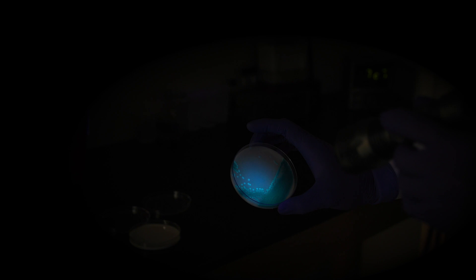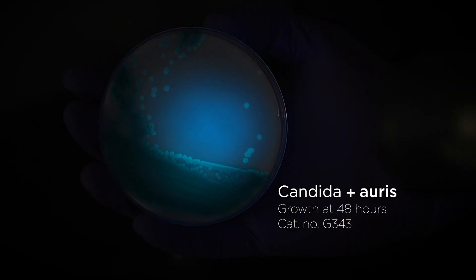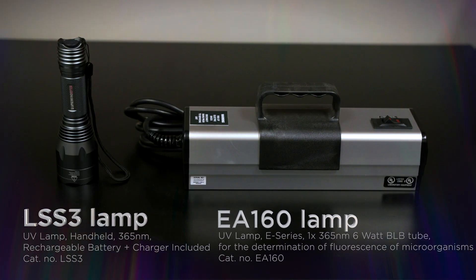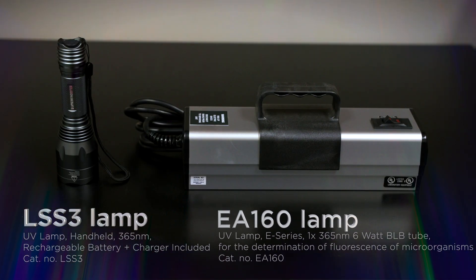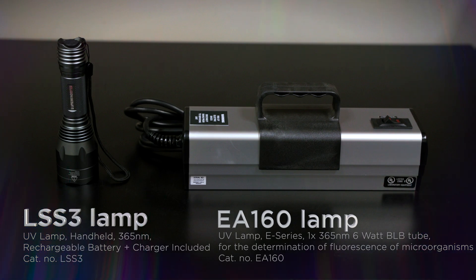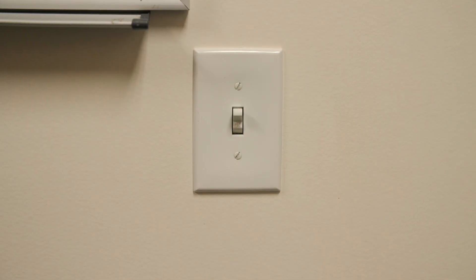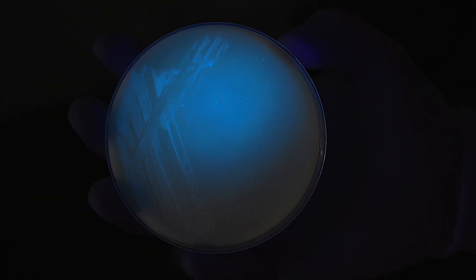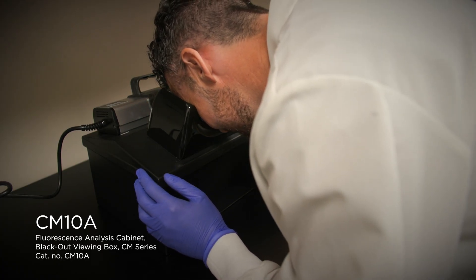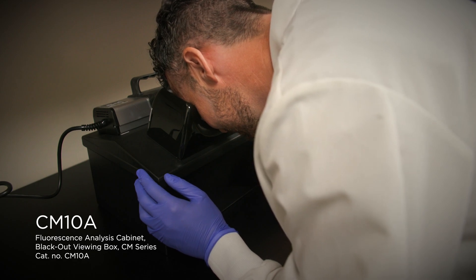In most cases, it will take at least 48 hours to obtain good pigment and fluorescent development. Make sure you are using a UV lamp with a wavelength of 365 nanometers, such as the ones shown here. You can either turn the lights off in the room or leave the lights on and use a dark viewing box to observe fluorescence. The environment must be dark to properly view fluorescence.